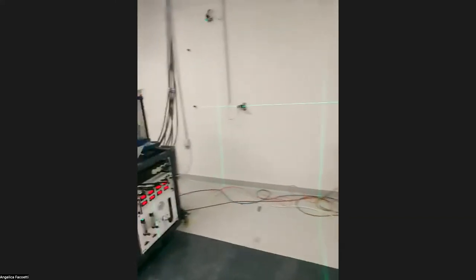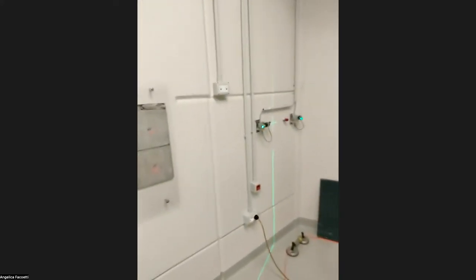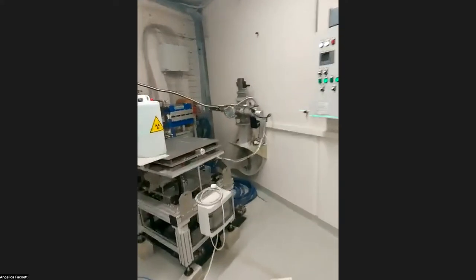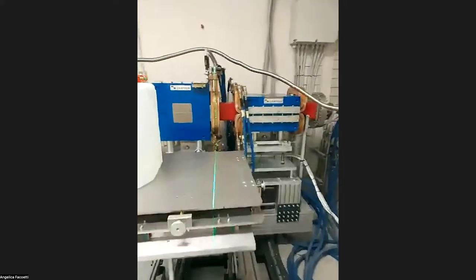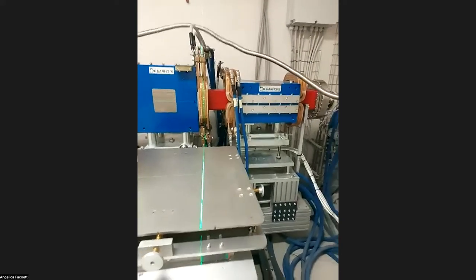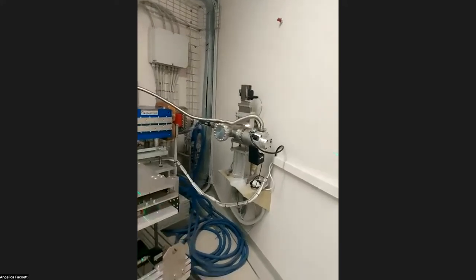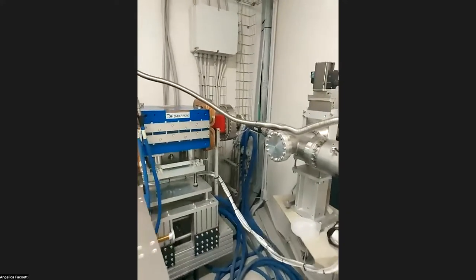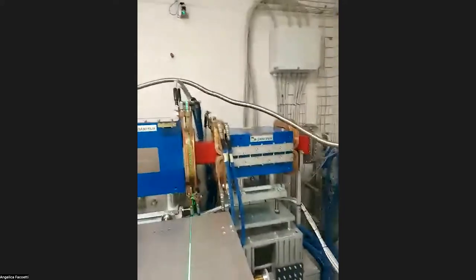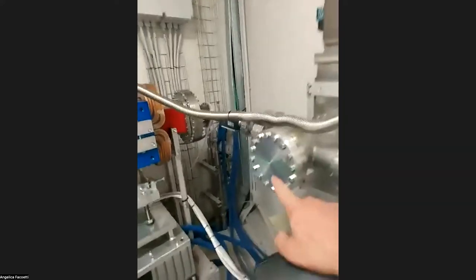So this is isocenter 2, this is isocenter 3, and this one is isocenter 4, and isocenter 1 is here. In our experimental room, we can bring the beam to different positions according to the experiment that we make. As you can see, there is no beam line installed now, because it is configured for isocenter 1. So you see the scanning magnets are offline. This is the beam exit.